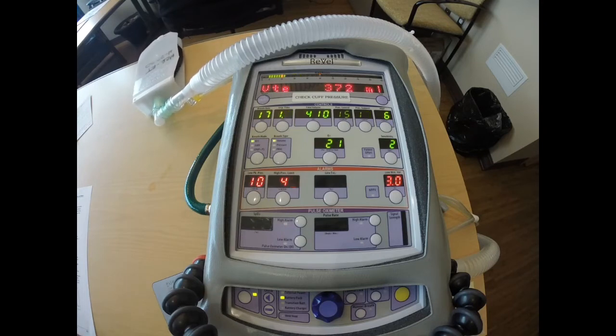What we'll do in this video is we'll discuss the indications of PRVC, disadvantages and risks of pressure-regulated volume control, how pressure-regulated volume control works, how we should move a patient onto the ventilator using pressure-regulated volume control, and a common alarm that we see with pressure-regulated volume control.